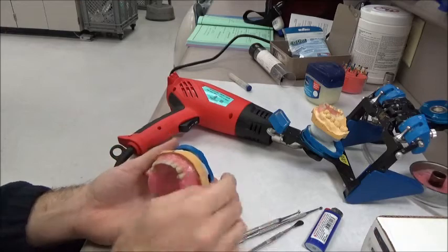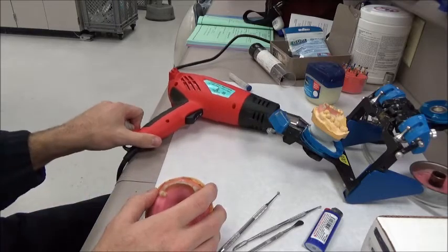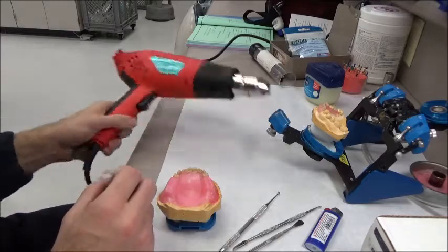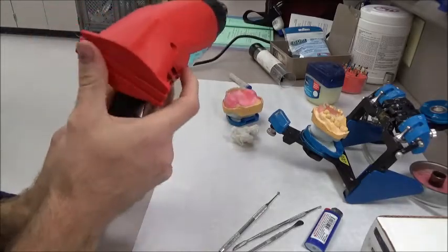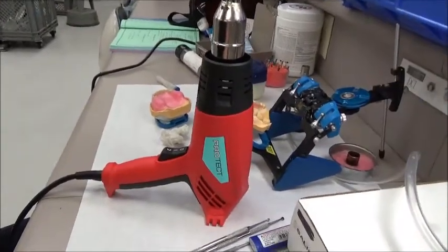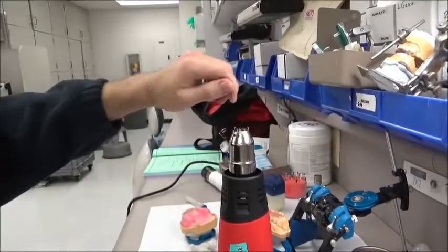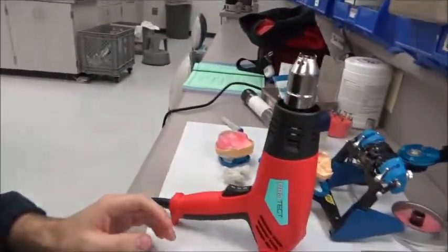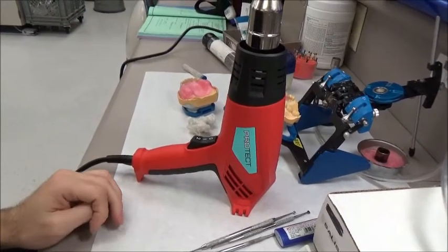That's a neat trick. When I was in the freshman lab the other day, we were stabilizing our 212 retainers with green stick compound. I don't have any green stick compound to show, but the heat gun worked really nicely for green stick. I think this flat end is kind of made so that you can set the heat gun like this and turn it on. You can just hold your green stick right above it here — that would be a neat way to get your green stick to heat up without using a Bunsen burner.